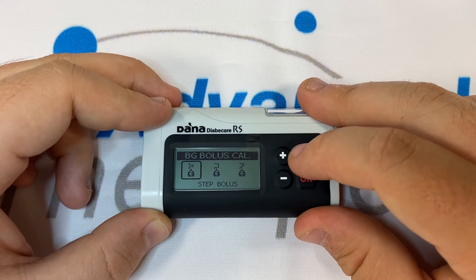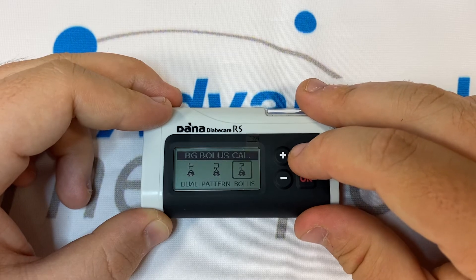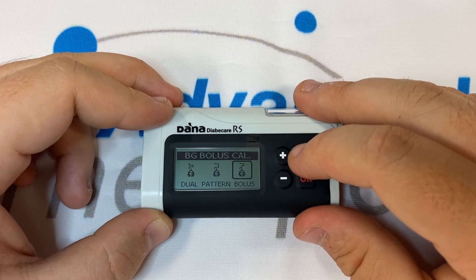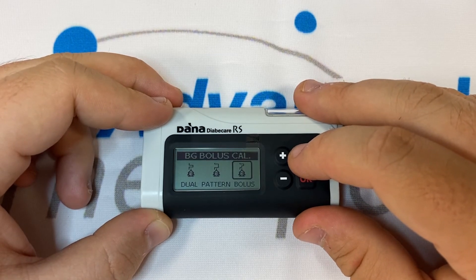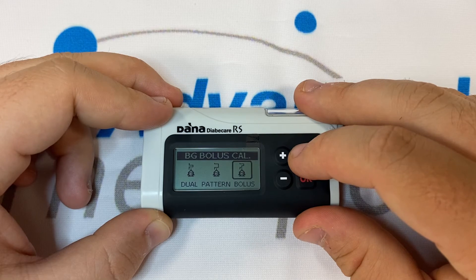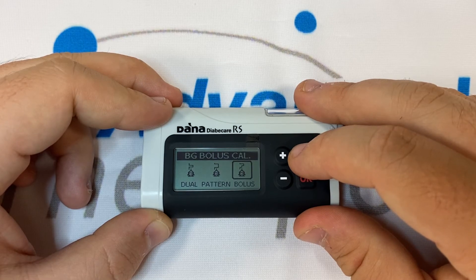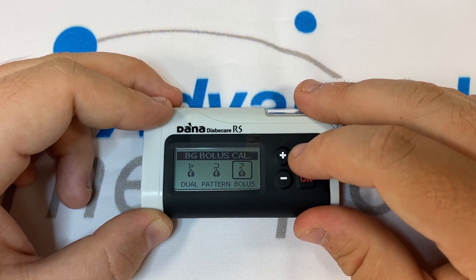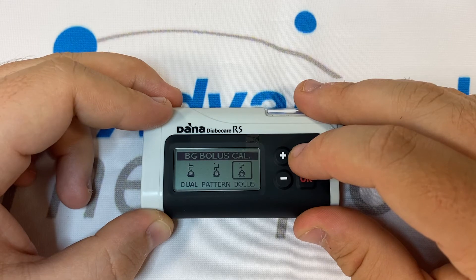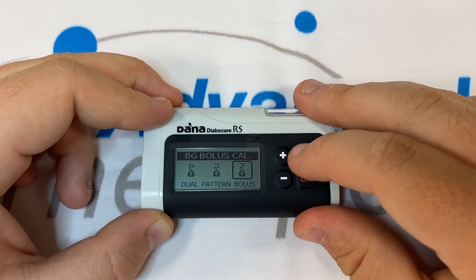Press OK and now the pump will ask for how you'd like to deliver the bolus. You have three options: step, extended or dual pattern. A dual pattern will by default split the bolus 50-50, allowing 50% to be delivered instantly and 50% to be extended for up to eight hours in half hour increments.